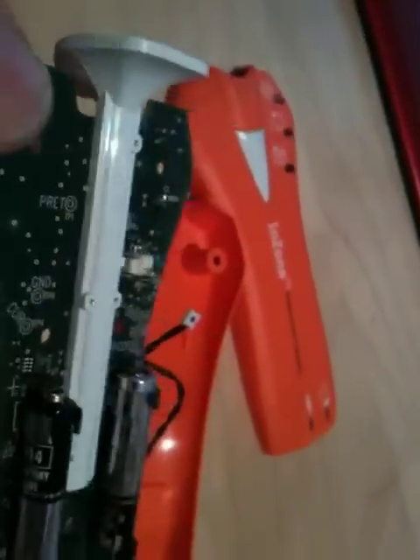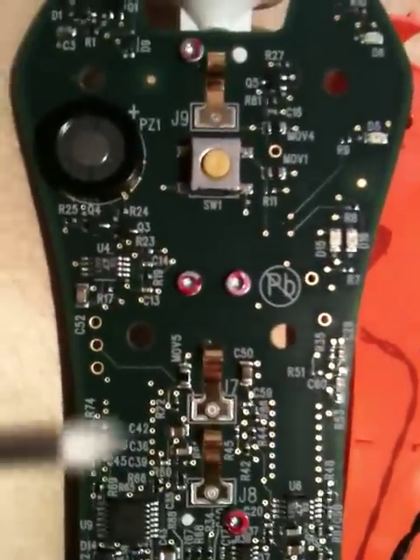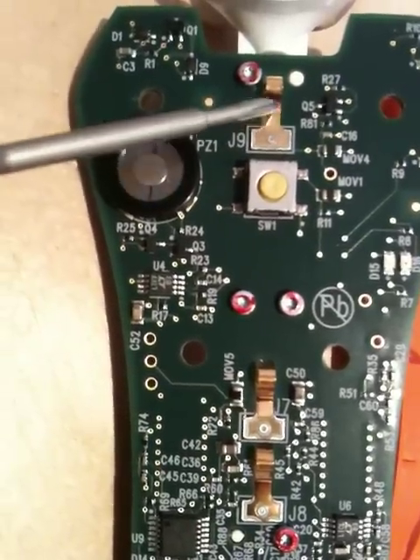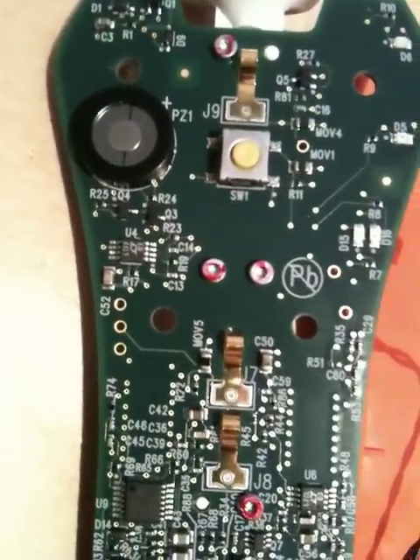This connector here leads to the other port. This plastic tube is a custom-made connection unit, so the end of the pushing wire for the coil drops into there. There are three springy contacts which connect to the coil. Some coil wires actually have three rings — two here, presumably for checking the coil wire has been inserted fully — and then a coil electrode going to the tip, plus a ground reference electrode exposed a little bit further back to create the electrolytic effect.